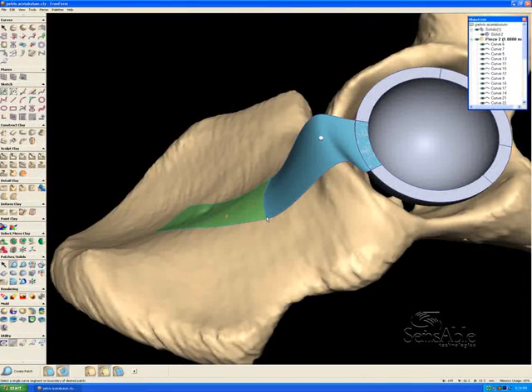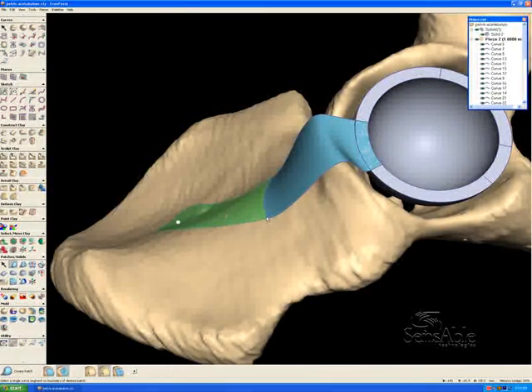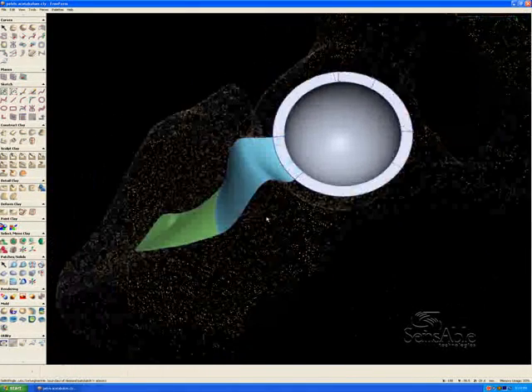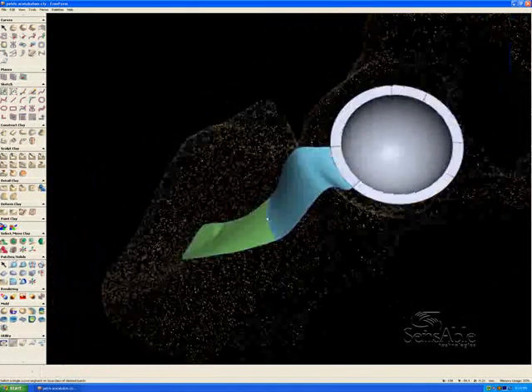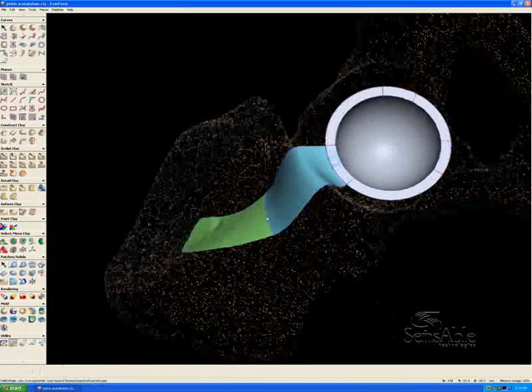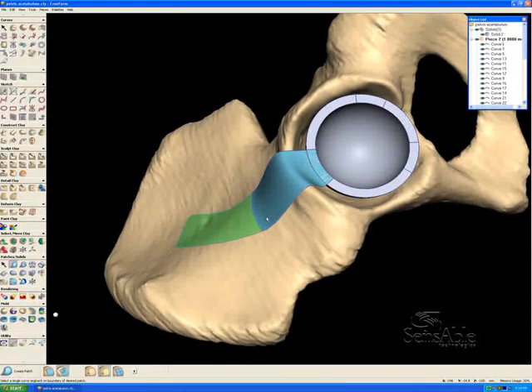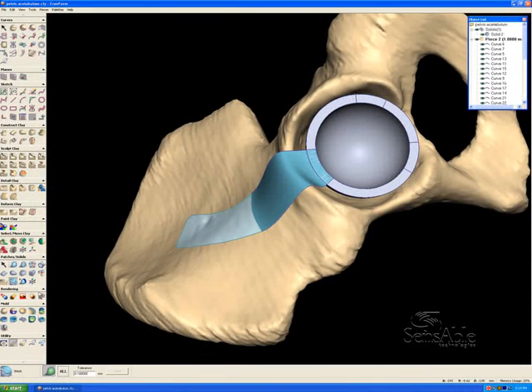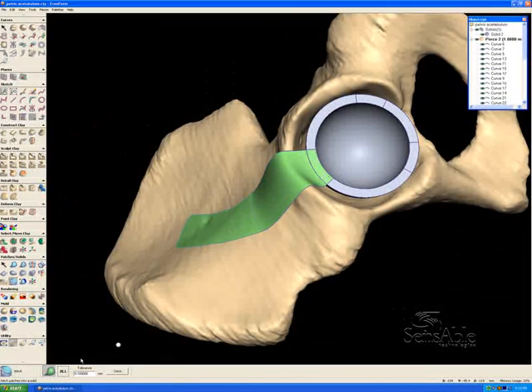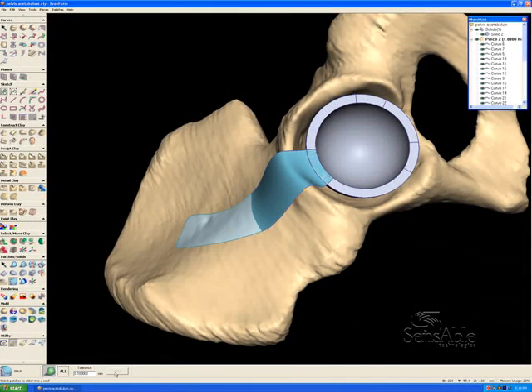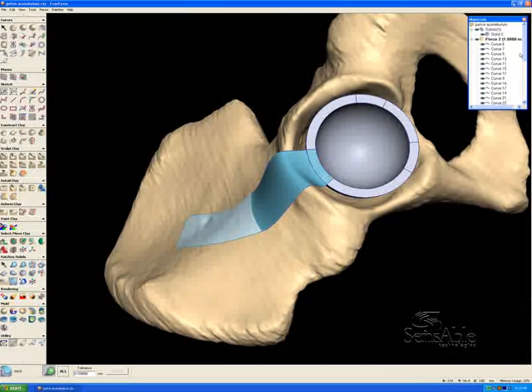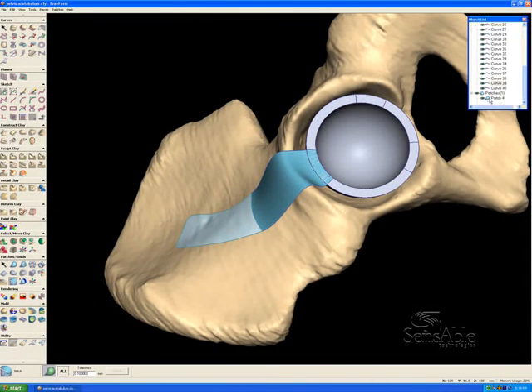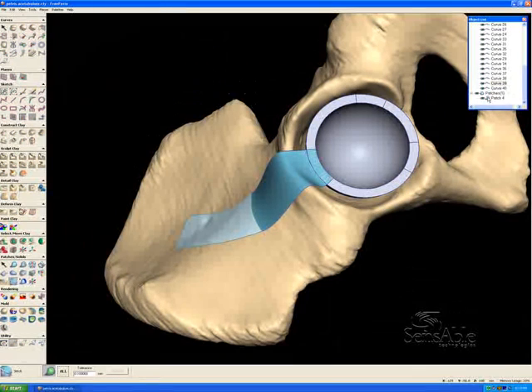And now we have three surfaces. There's one on the edge there, this one over the ridge, and the one that's fit to the scan data of the pelvis. What I want to do is I want to take these three surfaces and stitch them together into one surface. So right now I'm going to do that just by clicking all down here and stitch those three surfaces together. So now we have three surfaces that are stuck together. Only one of them is fit to the clay and it's represented here in the object list.